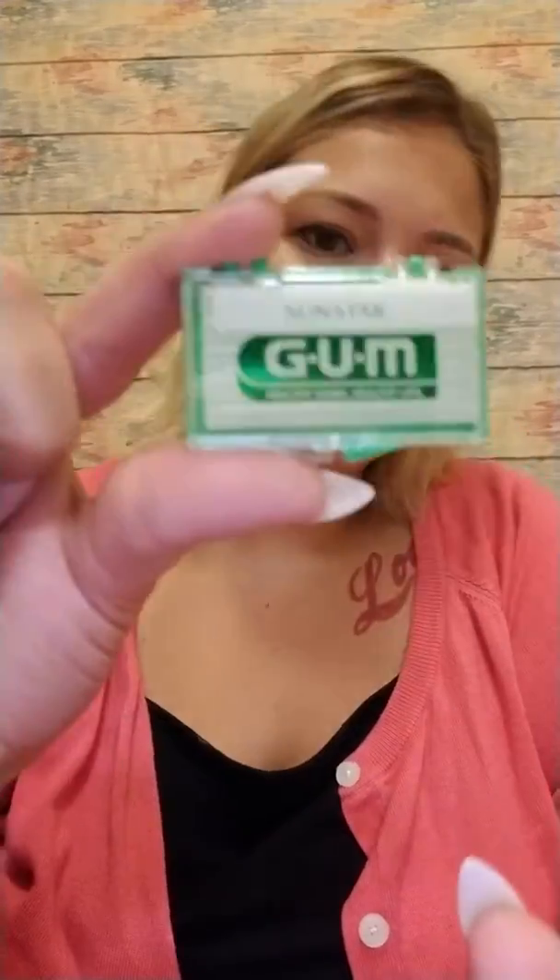And that's really strict — don't play around with that. Only keep it out for those two hours a day. Second thing: personally, the top of my lip is getting very irritated and it was kind of cutting my lip. So I trimmed some off, which did help, but I didn't want to trim anymore because I was worried I would mess up the aligners — they warn you not to cut too much off. So I went out and found this at CVS. It's called Dental Wax.